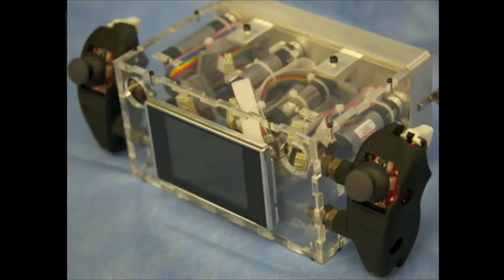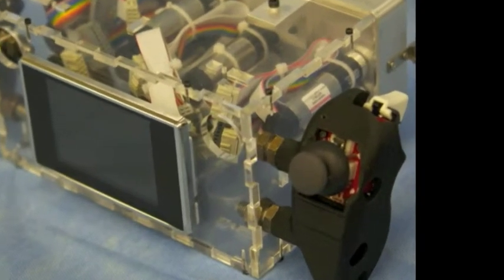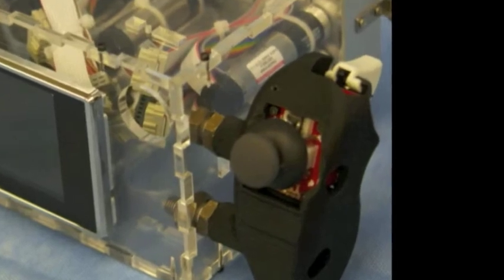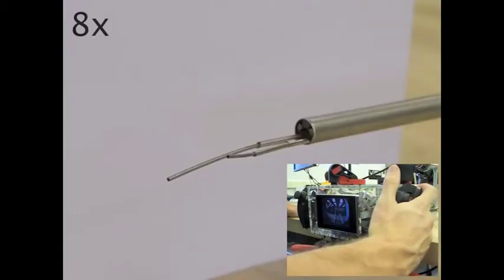The user interface section contains nine motors and quick connects to the rest of the robot. The surgeon grips the handles and manually moves the entire system while controlling the robotic arms with the joysticks and triggers embedded in the handles.